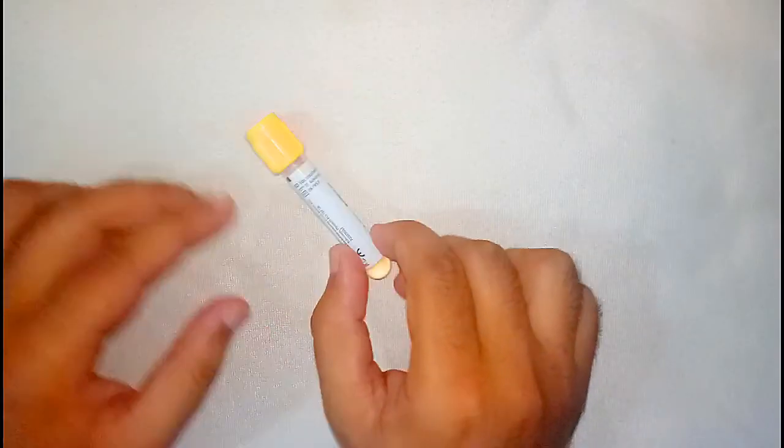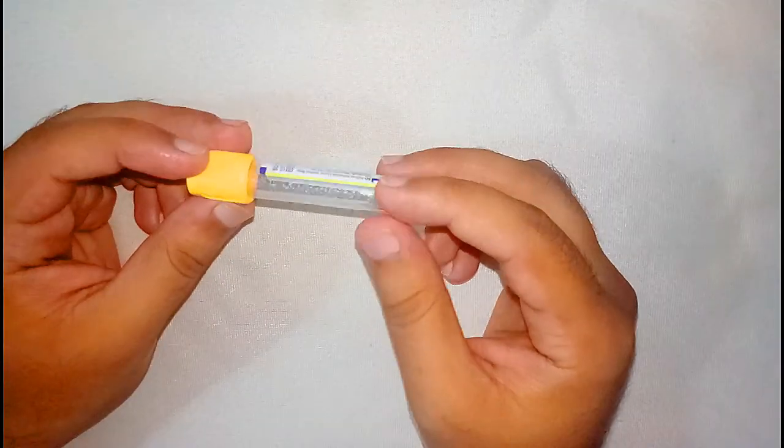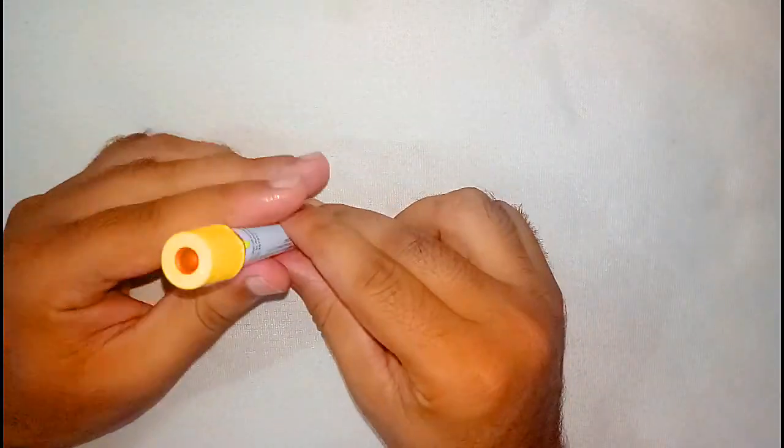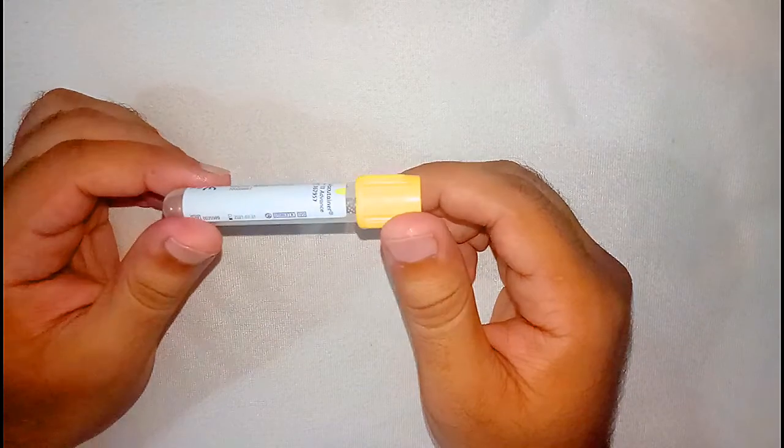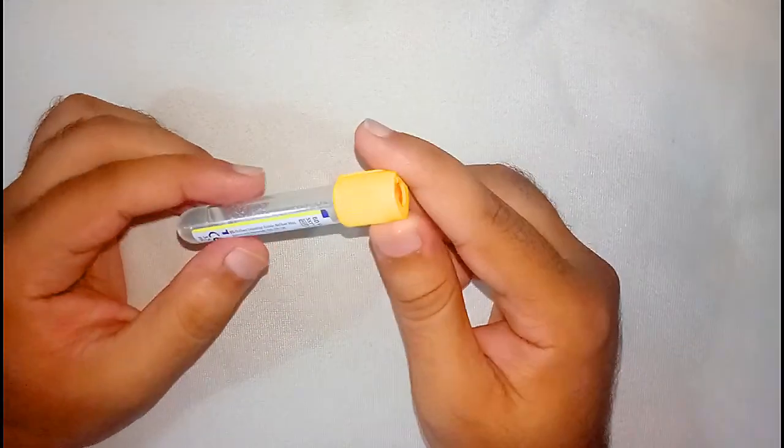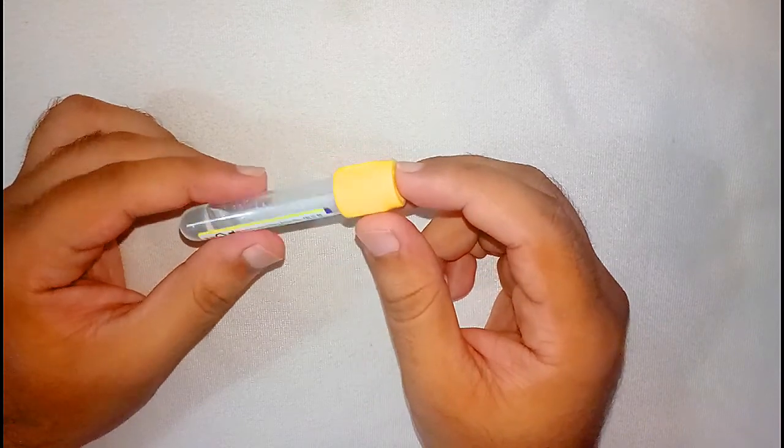Bismillahirrahmanirrahim, dear audience. Today we will discuss this blood collecting vial. You can see here that there is a yellow colored cap on this vial, and what this yellow color cap demonstrates, we will discuss in this video.